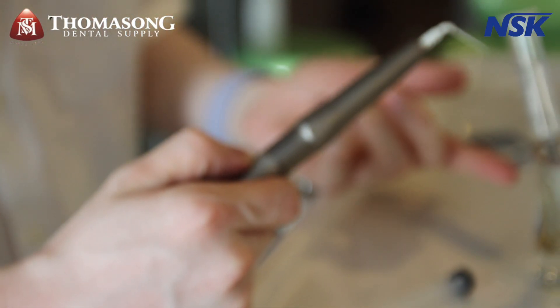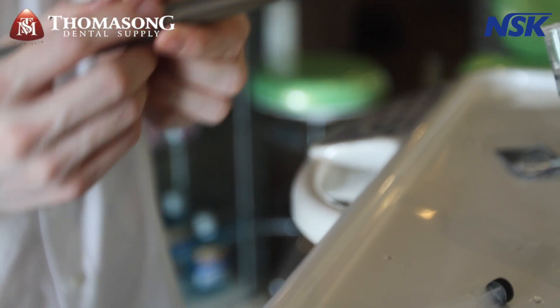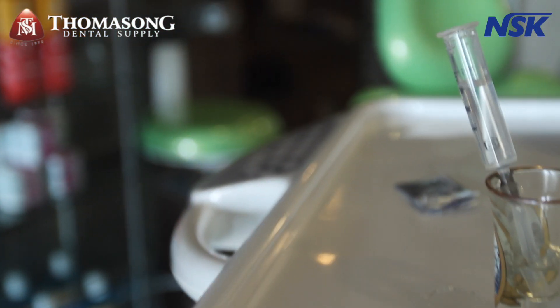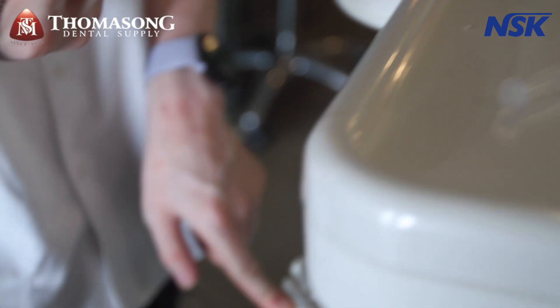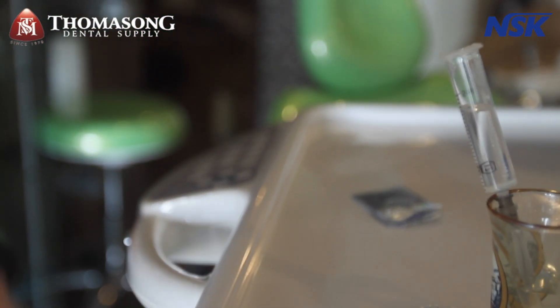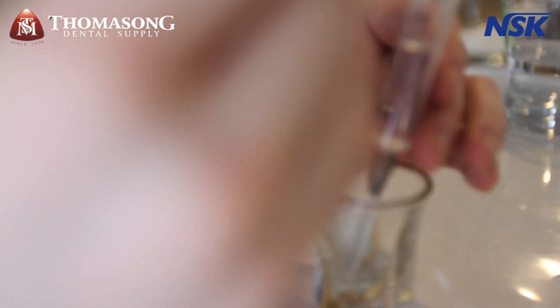The first step is to show the low setting, then I'll go to high and we'll see what happens. The best place to connect this is in the high-speed tubing, because this tool needs air to operate.